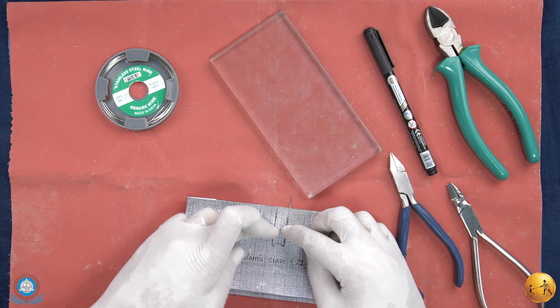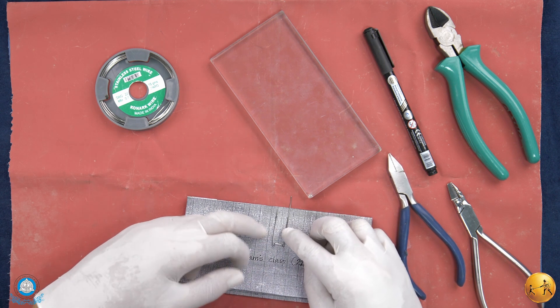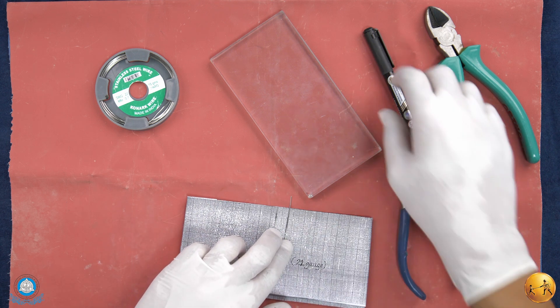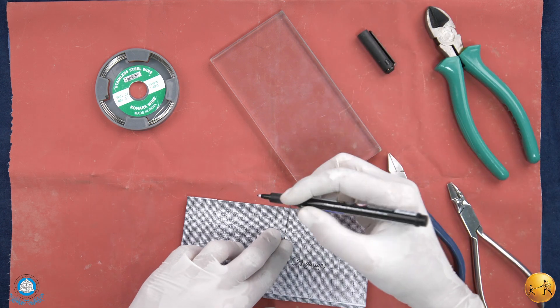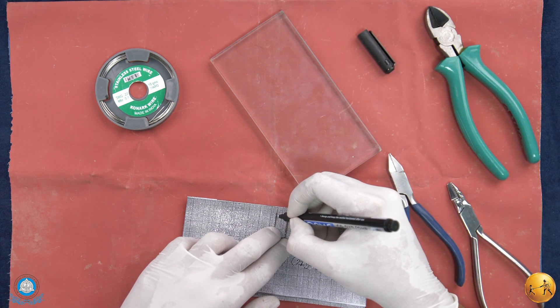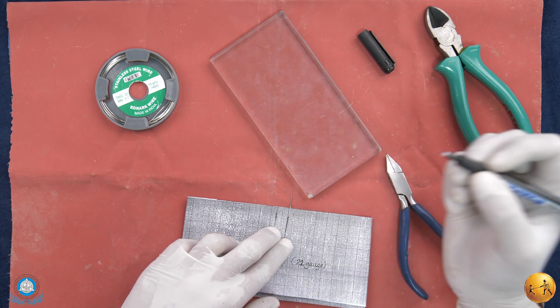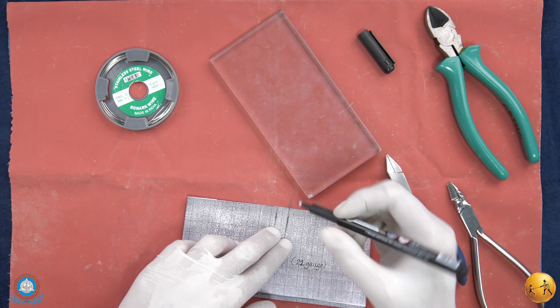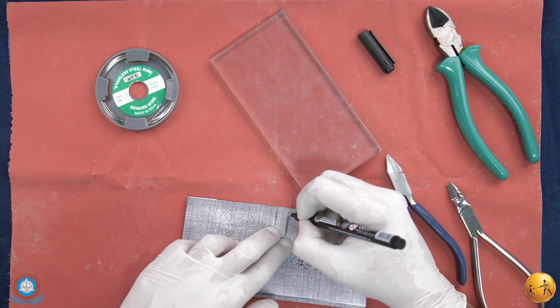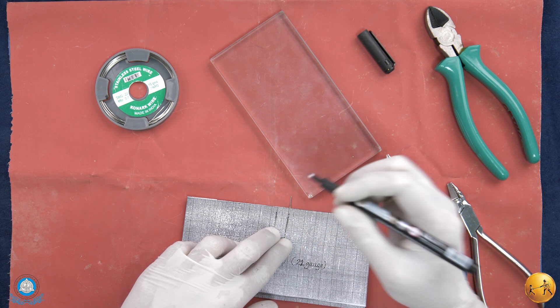The outline is exactly matching the wire bending that we have done. Now we go ahead with making the arrowheads. First, mark two points at the end of the wire bending, then mark two more points 4 mm beyond these ends — these are the points where we need to cut our wires.